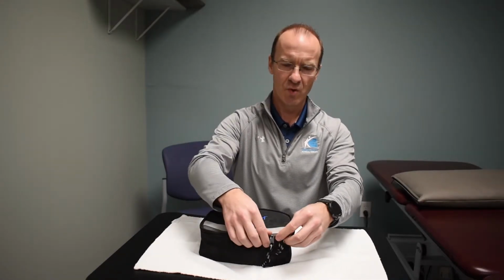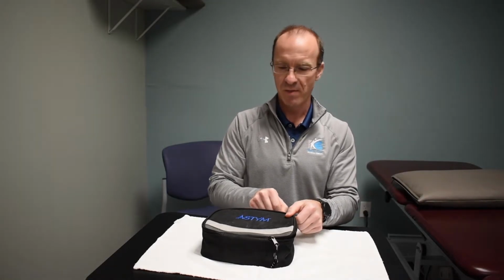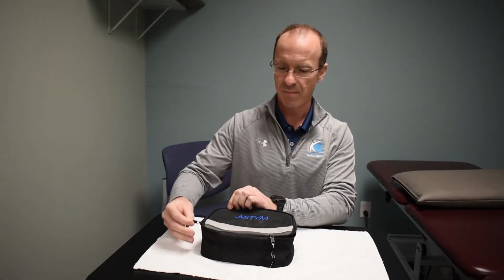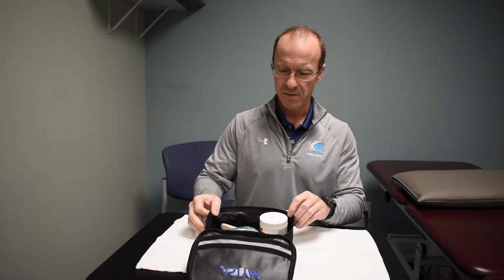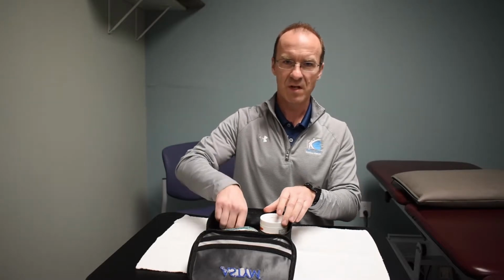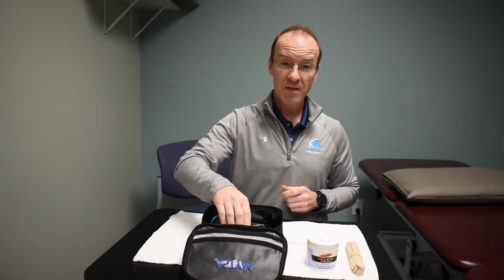So the Astym tools are found inside of our box here. So when you come into the clinic and you see me opening this up or you hear the sound of the zipper, you'll know that we're going to be starting an Astym treatment with you. Inside of the box, we have a few things in there. We have tongue depressors, and we have some type of a lubricant that we're going to use on your skin so that we decrease the friction to the skin, and something that's called petechia, or the little red bruising that you might see. Inside the box you'll find the tools that we have.